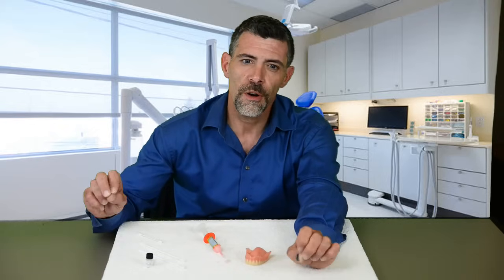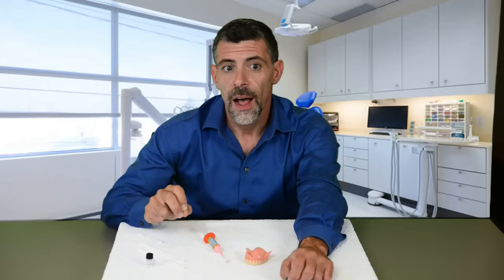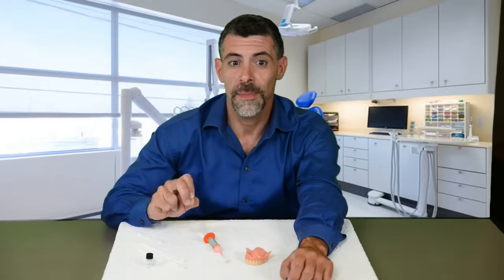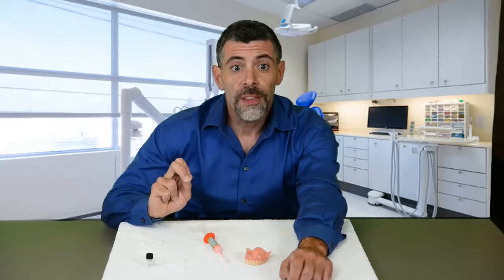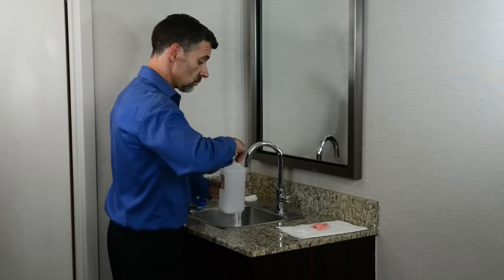Use the snug-up instructions to tighten your dentures after your initial application of Denture Fit, or if your denture gets loose in the future. If you are applying Denture Fit over a soft reline from your dentist, use these snug-up instructions for your initial application. If you are doing the snug-up immediately following your initial application, make sure your denture is perfectly dry — a hair dryer comes in handy right about now.